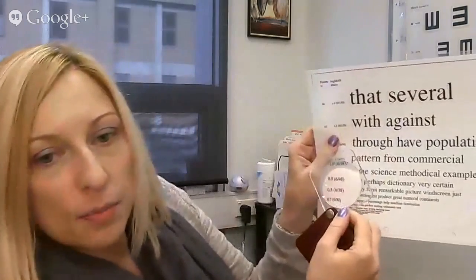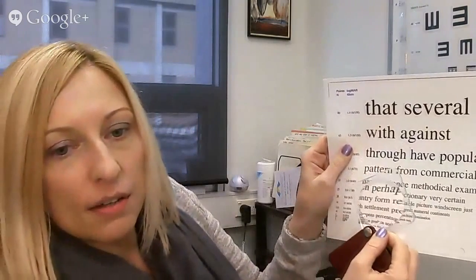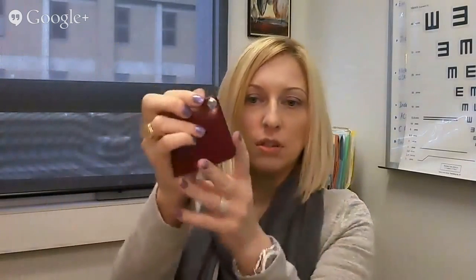There are also other useful magnifiers. These little pocket magnifiers are great for taking shopping — they're three and a half times and come in a little leather pouch. They're not encased, so they capture quite a lot of light and you can see really well with them when you're out shopping. Because they're in the leather pouch they're quite protected. They're good for reading prices.